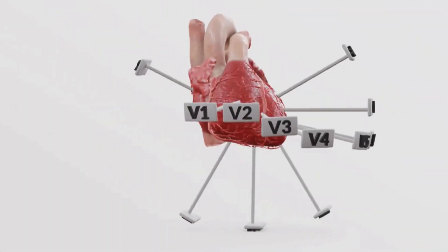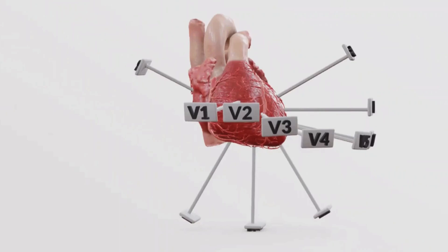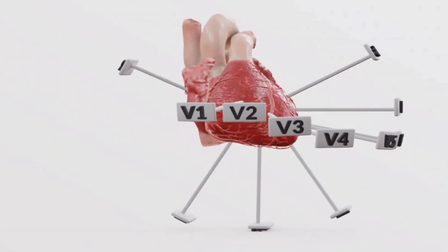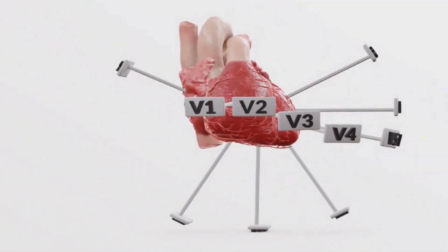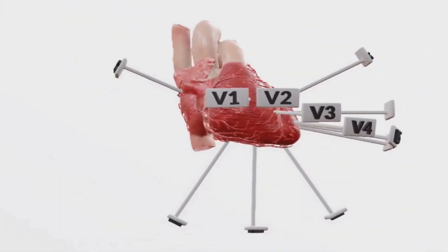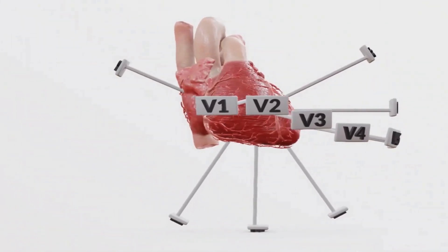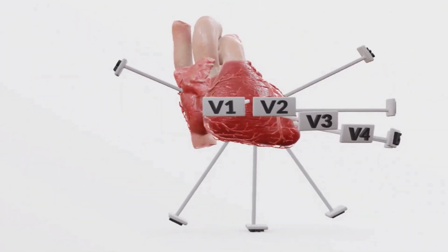How do ECG leads actually see these walls? Let's start with the anterior region — that's the front of the heart. For the anterior region, you want to look at V1, V2, V3, and V4. These are your anterior region leads, placed right across the front of your chest to give us a really good look at what's happening there.